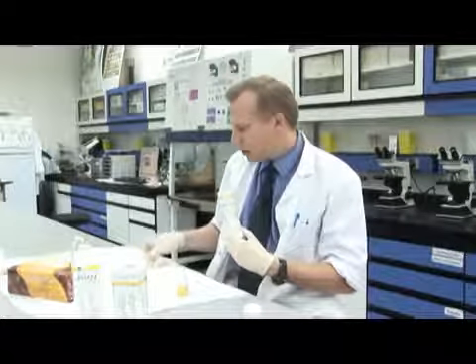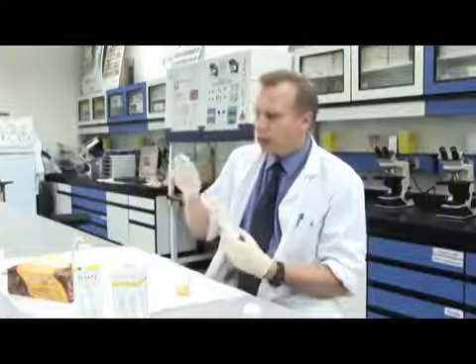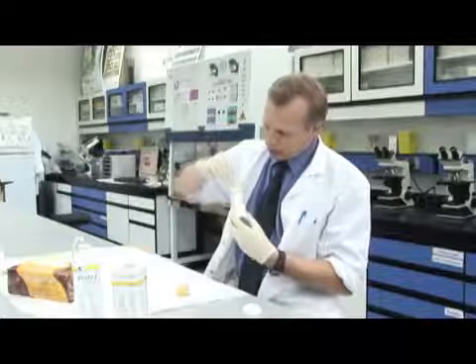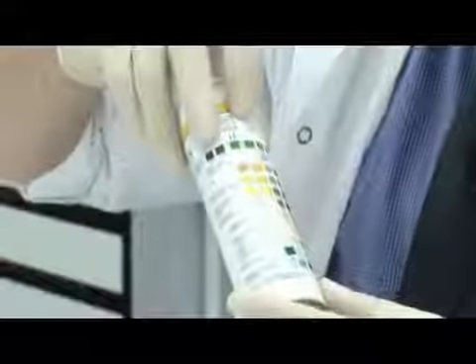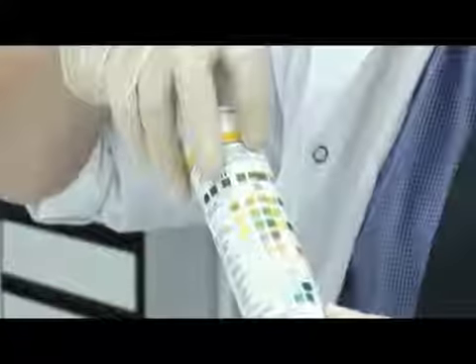Okay, I think that's probably had enough time now. We're getting a strong colour reaction there on the end. So if we hold it up to the vial like this and look along it, making sure I've aligned the squares properly, I'll start at the bottom, and we've got quite a strong blue colour down there. This one is the test for blood.